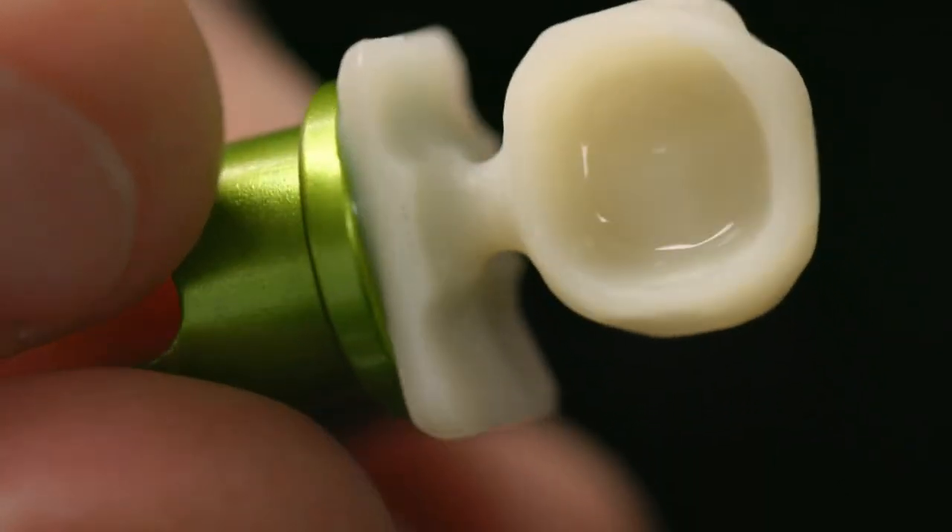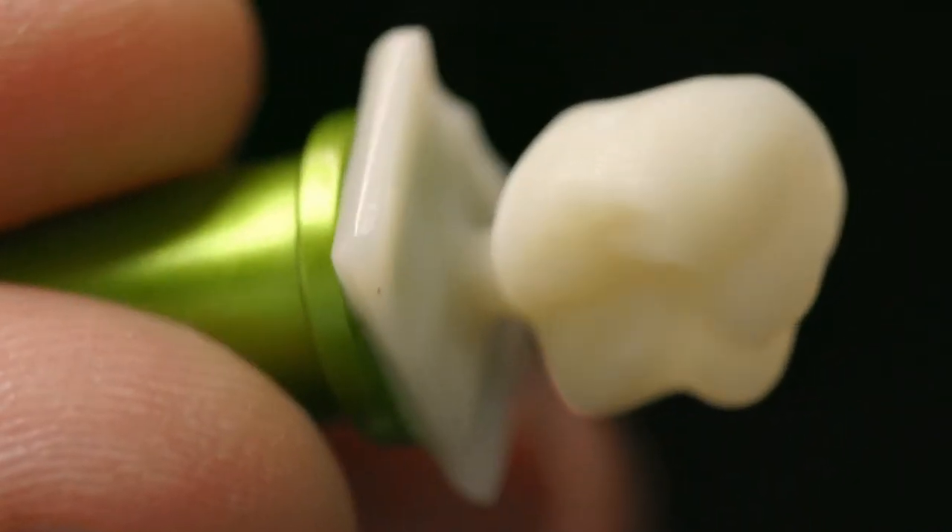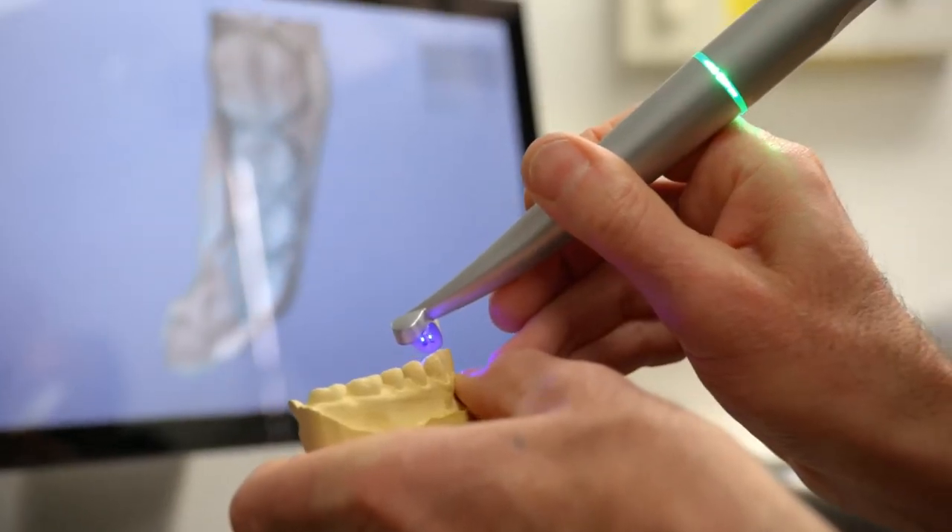That is beautiful. And it's very easy, obviously, as you can see. Just polish or stain and glaze — no crystallization needed. Very nice and a nice time-saver. I was absolutely blown away by how easy this was. Literally, it's plug and play. It's a game changer. Digital dentistry is not the future. It's today.